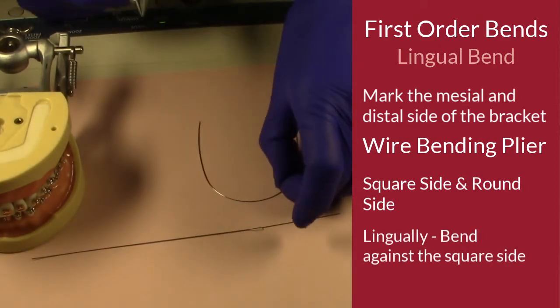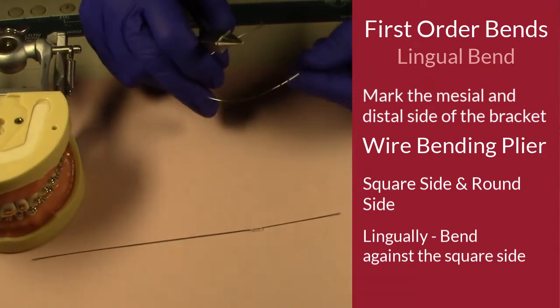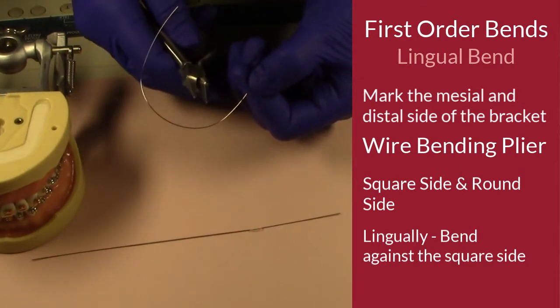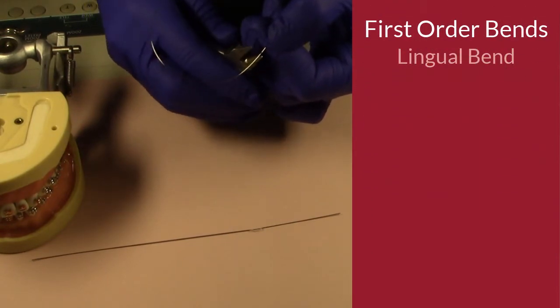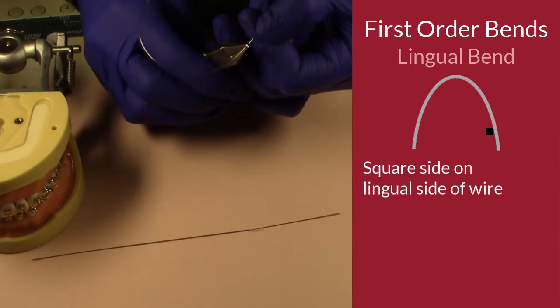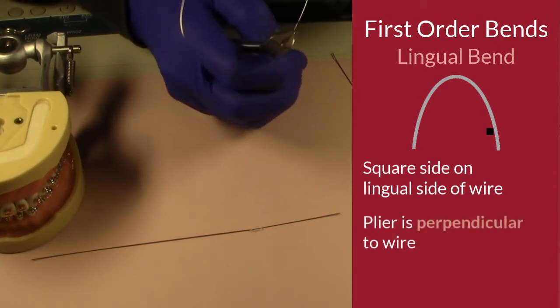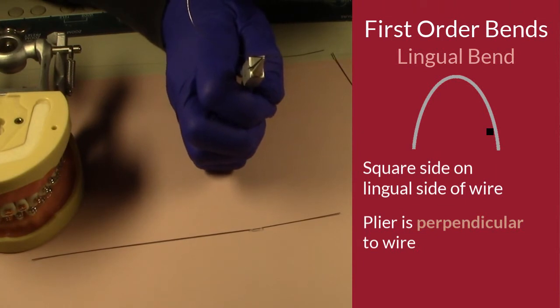So I'm going to bring up this arch wire, and let me see if I can find my little dot again. So I'm going to place my arch wire, and I'm going lingually, right? So I'm going to put the square part of the plier right mesial to my dot. And then I'm going to make sure that this is perfectly perpendicular to the plane of the arch wire.